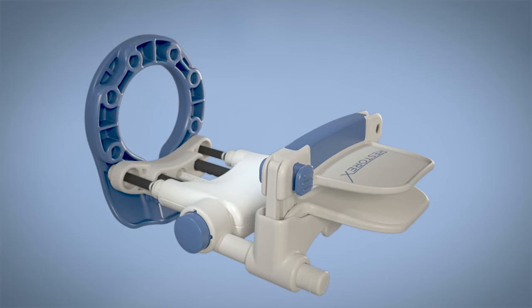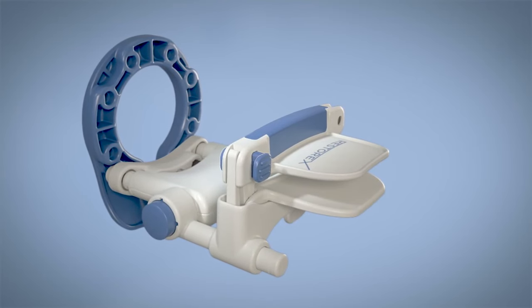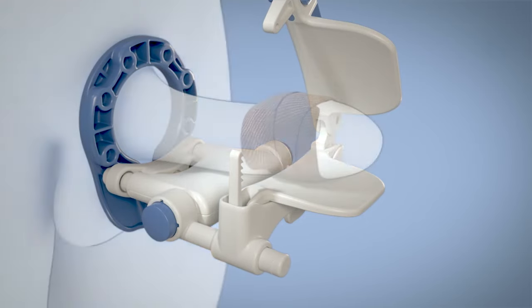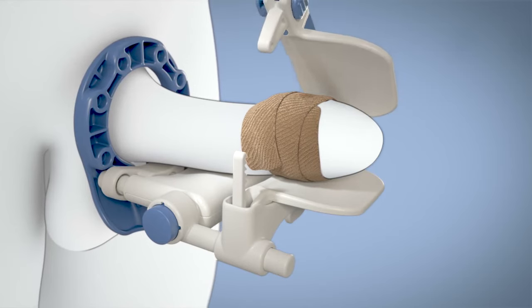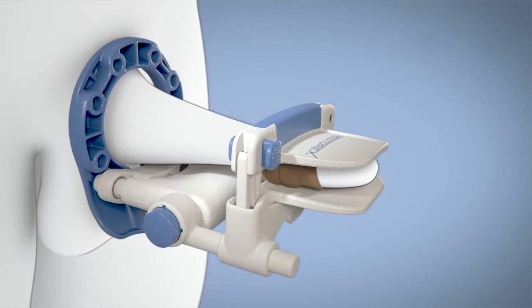Let's use Restorex. Begin with Restorex pulled all the way back toward the pelvic ring on both the extension rods and tension rods. Place your penis through the pelvic ring and onto the open clamp. Slowly and gently close the clamp. Continue to close until it is tight enough to be secure but at the same time can be worn comfortably for 30 minutes.